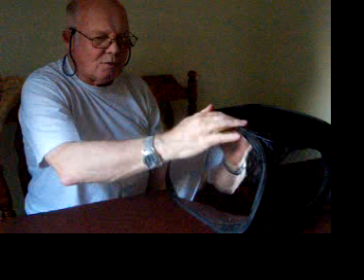The exercises are done for ten repetitions over about ten seconds. The final exercise is to place the ball under my palm and press it down. Again, over a period of time I start to feel as if my left hand is also pressing down on the ball, so again ten repetitions.